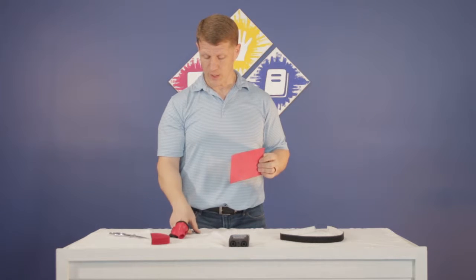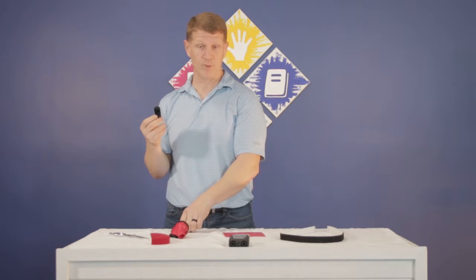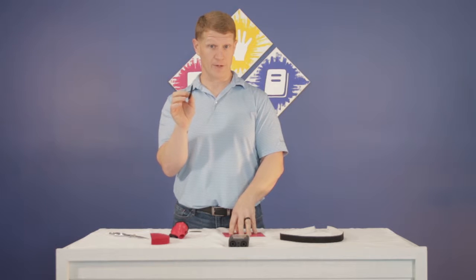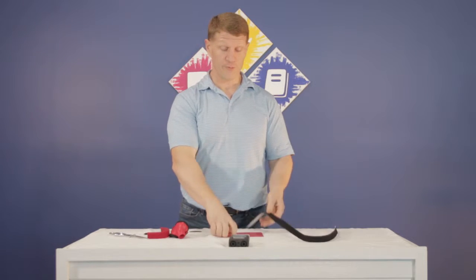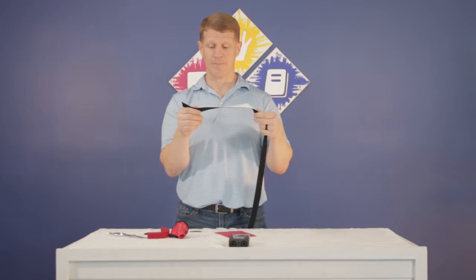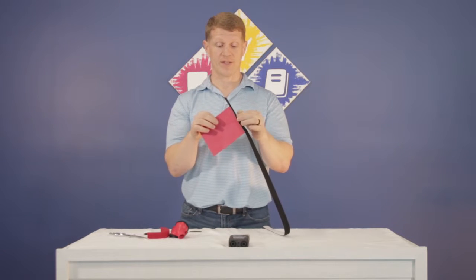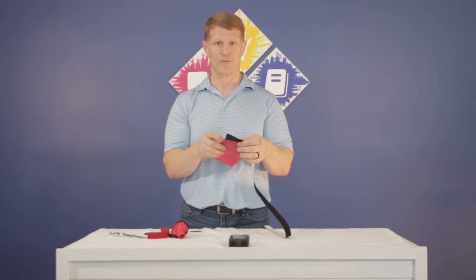We use Velcro brand Velcro with a sticky back. We'll heat this up — make sure you find out from your rep whether you should heat the back of your Velcro, as some shouldn't be heated. For the perforated material, you'll get a little jagged edge sometimes, so we use a long roll of adhesive-backed felt, cut into three-quarter inch width strips, and wrap that edge. When it wraps around, you'll see in our finish stage it gives a nicer, more professional and softer edge.